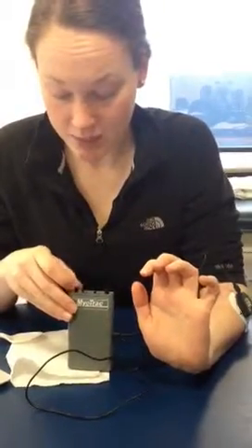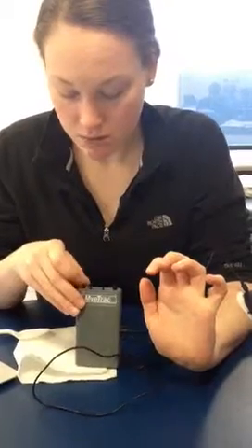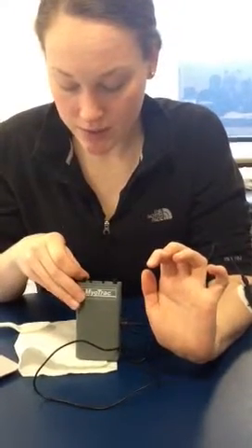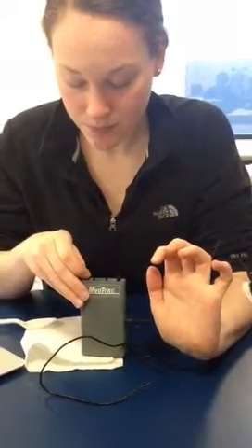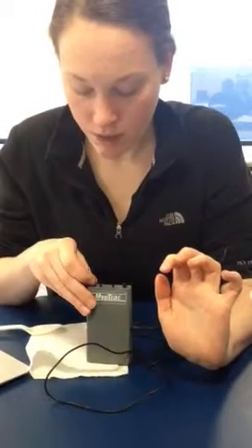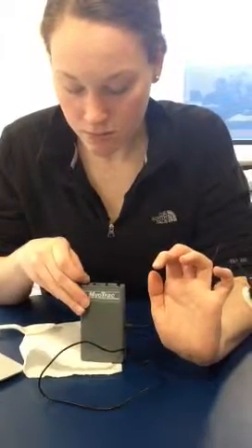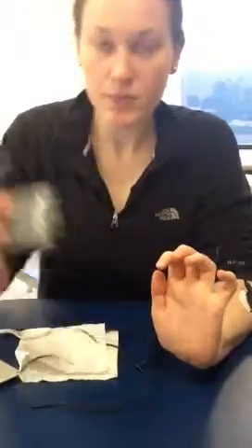I'm going a hundred times 0.6, a hundred times 0.7, a hundred times 1, a hundred times 2. And now I'm nicely right at the beginning of the beeping.